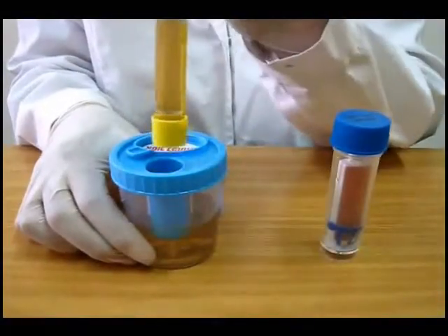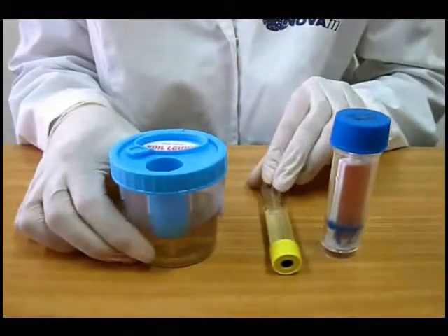Remove tube from the container and process according to standard laboratory procedures for general urine chemistry.